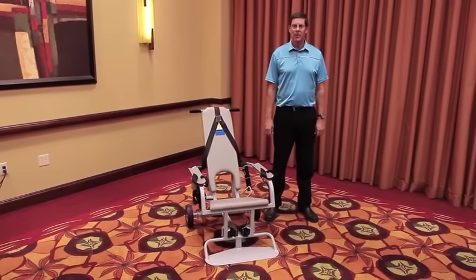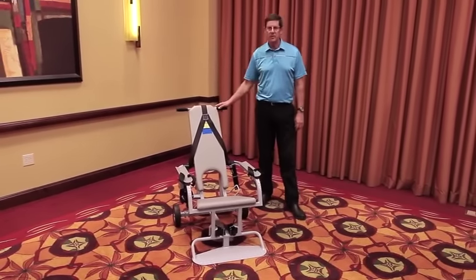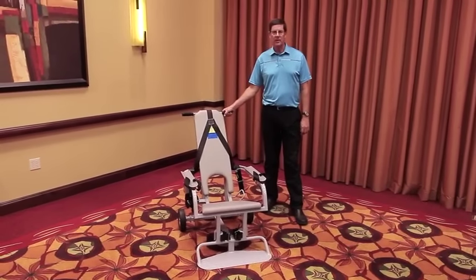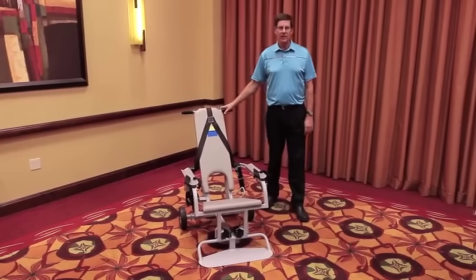Hi, I'm Dan Coogan, owner of Safety Restraint Chair. We manufacture and sell these restraint chairs to prisons and jails, hospitals, and all kinds of medical and psychiatric facilities.